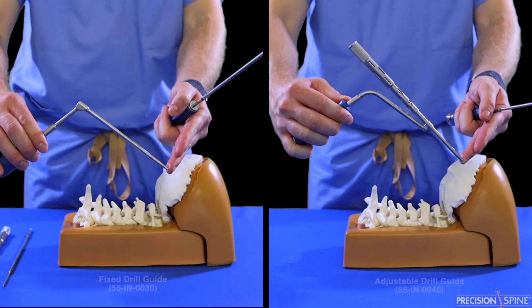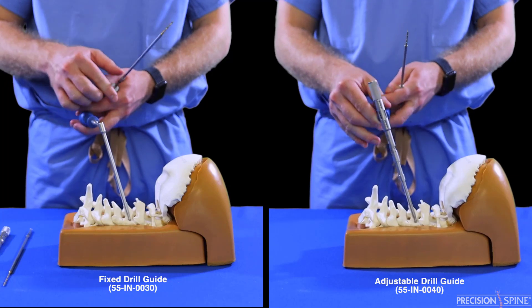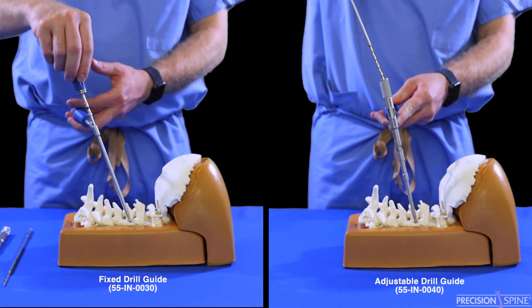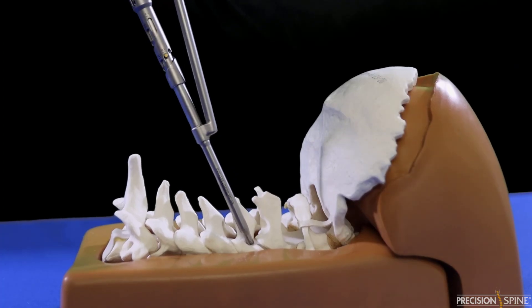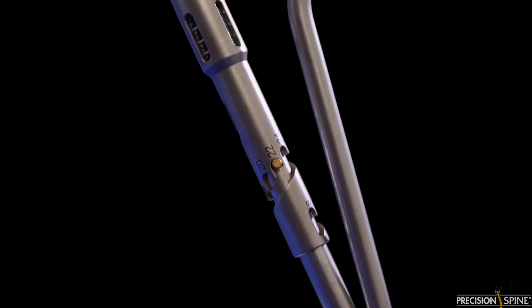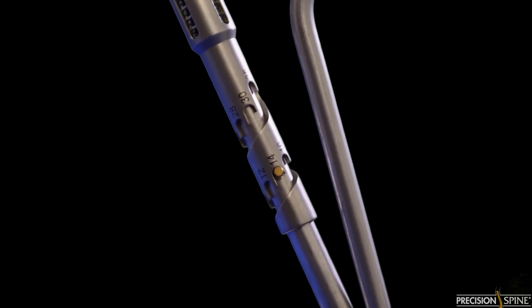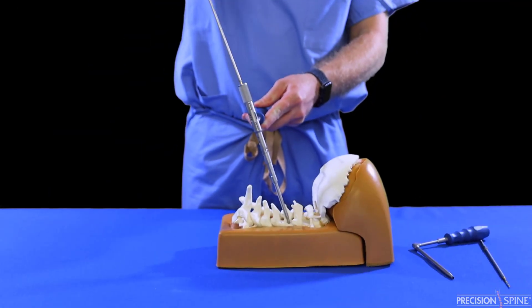There are two options for drilling. You can utilize a fixed drill guide or an adjustable drill guide. The adjustable drill guide is adjusted by pulling back on the proximal end of the guide and twisting the gold lock to the desired length. Use caution when drilling and make sure the fixed drills are used with the fixed guides and adjustable drills are used with the adjustable guide.